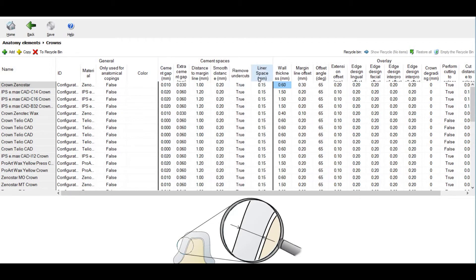If you press wall thickness, you will see a diagram showing the thickness of the wall that you have set. If you want to change this thickness — increase or decrease — just double click and you can change it. You can change other materials the same way by double clicking. You can set the wall thickness related to the minimum thickness. If you don't want to change it by default, you can set it in the thickness map in the dental designer from restoration to restoration. After changing your settings you can save and then return to the dental manager.